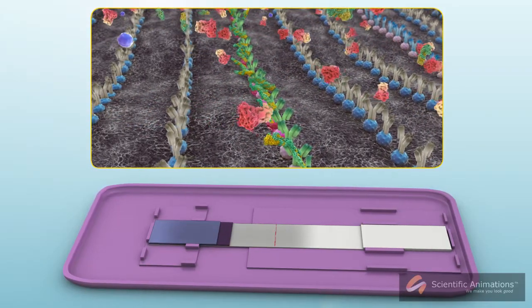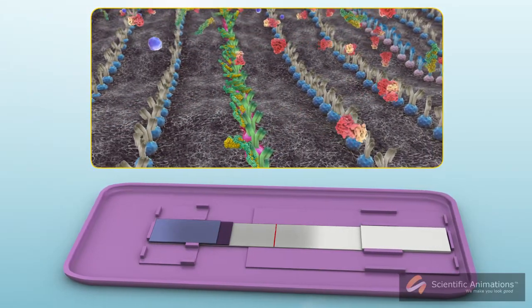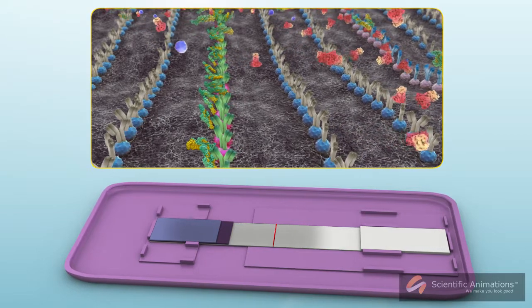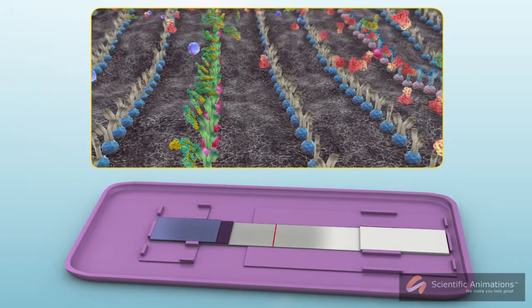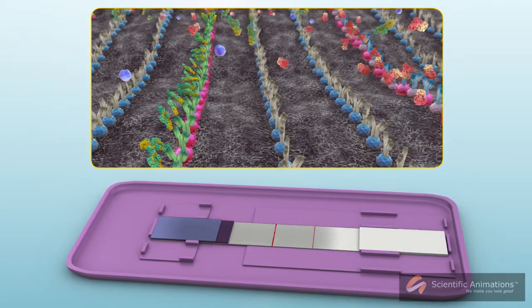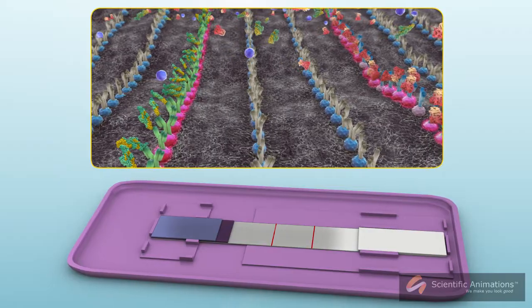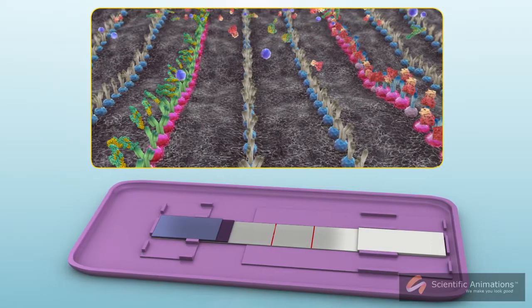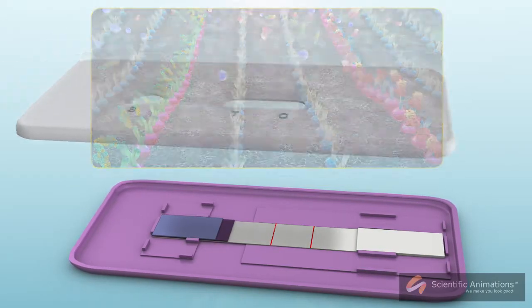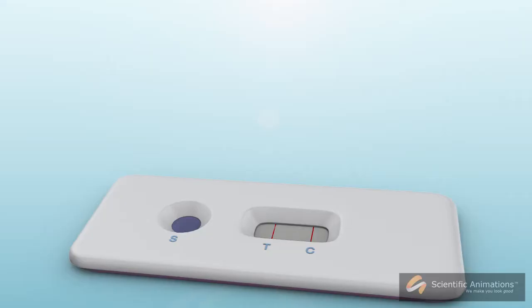The pigment-antibody complex: when the HCG enters the region, it selectively binds with the antibody, thus activating the indicator molecule. The pigment is revealed in a line across the region, indicating a positive result.